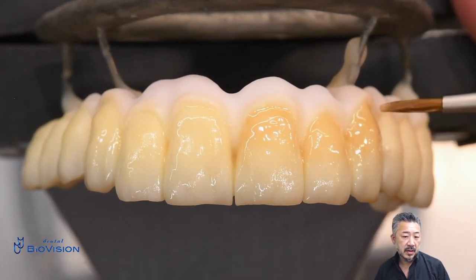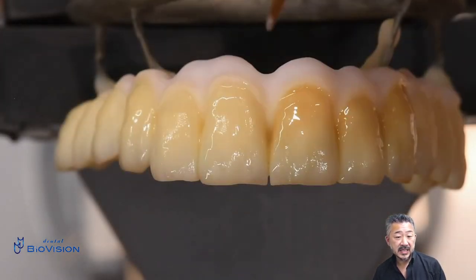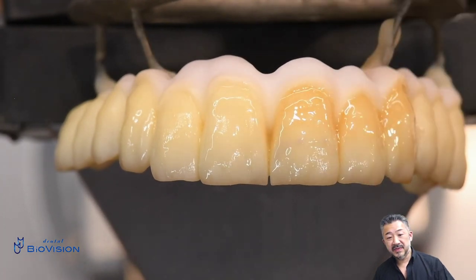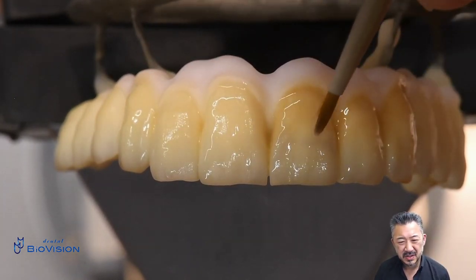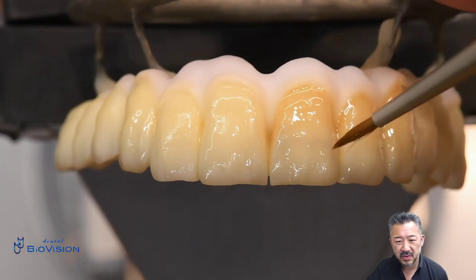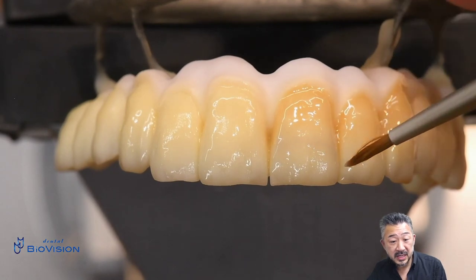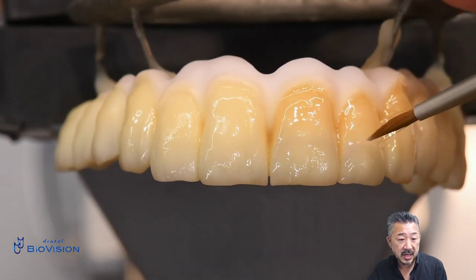When the frame is completely fixed like this, stains are very difficult to apply. Actually it is not fixed like this — this is just to make it easier for you to see. Anyway, after that apply the purple paste near the incisal edge to control the brightness.